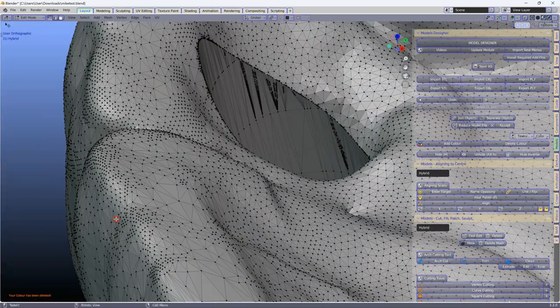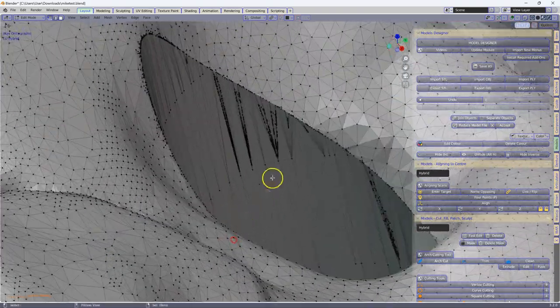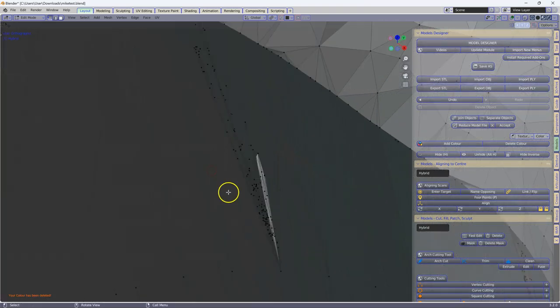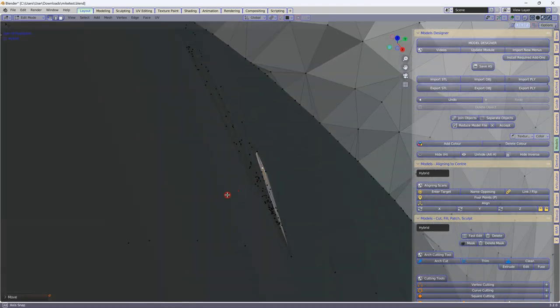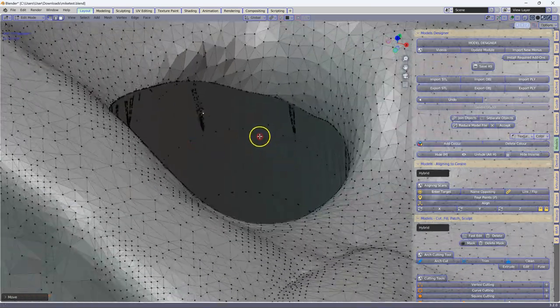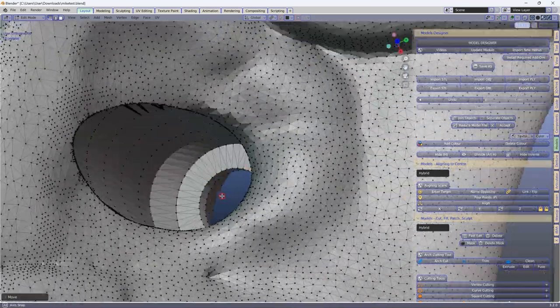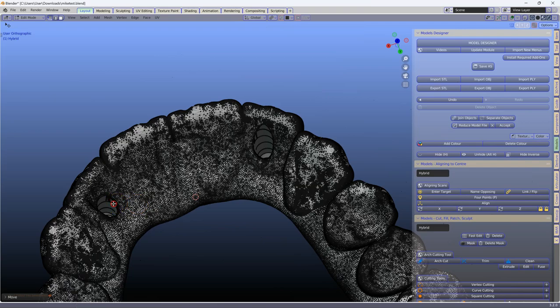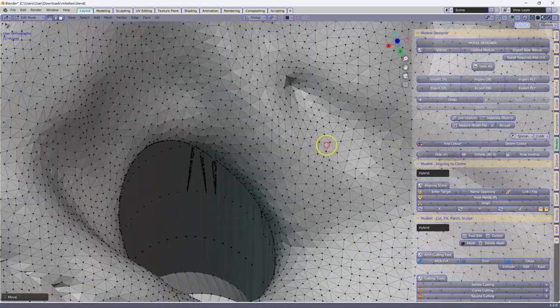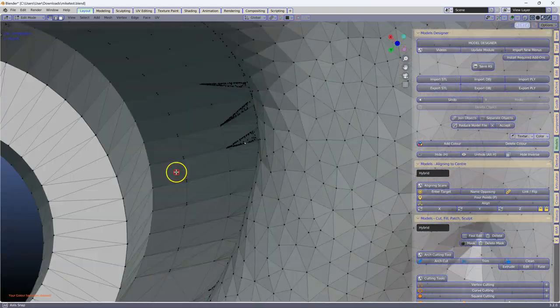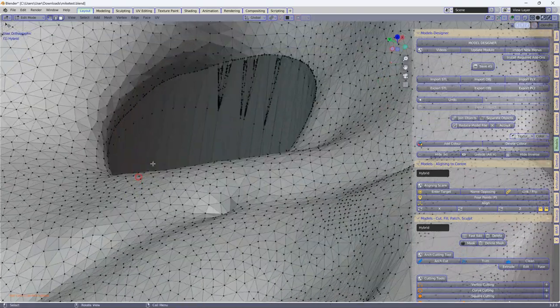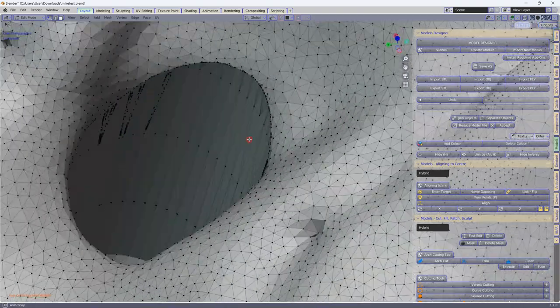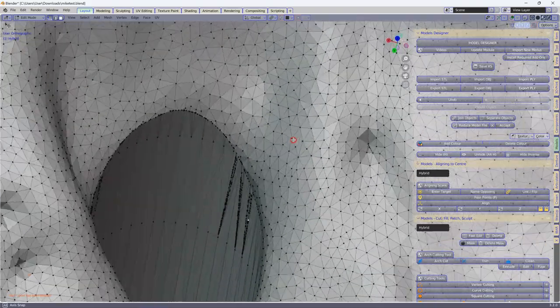Now this is a big problem when it comes to boolean cuts, and this runs all the way down, and we've got some incorrect mesh over there. Let us have a look at the other side. The other side, we have the same problem going on, and it continues all the way down. So this is a major problem.